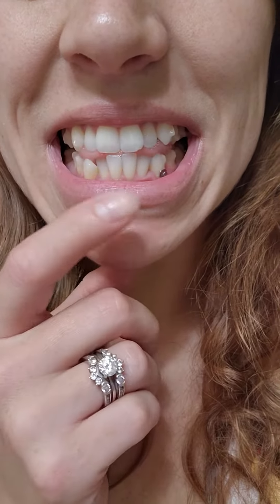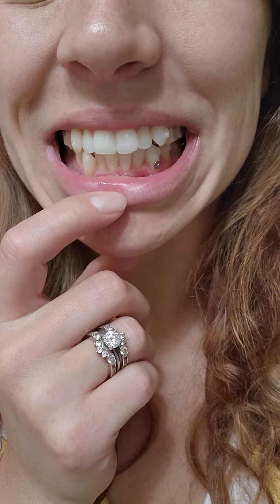This is just to show you the progress because tray 8 was put on Wednesday and it's Friday morning. Look at this difference down here — it's finally moving because his tooth is not sticking out as far.